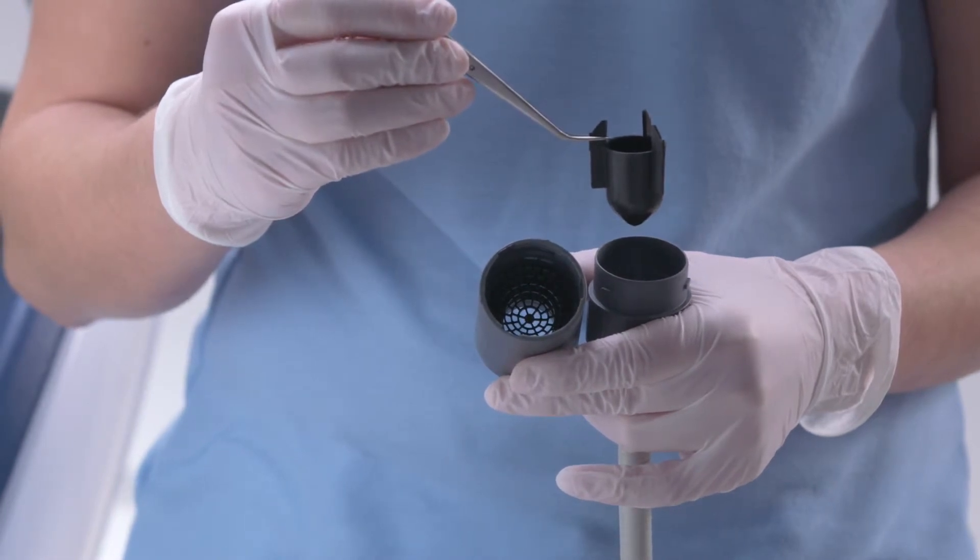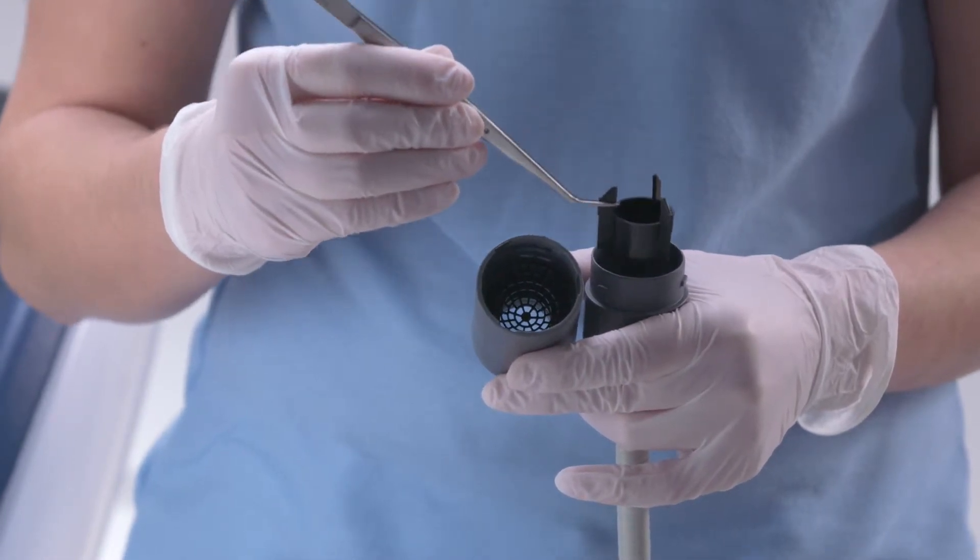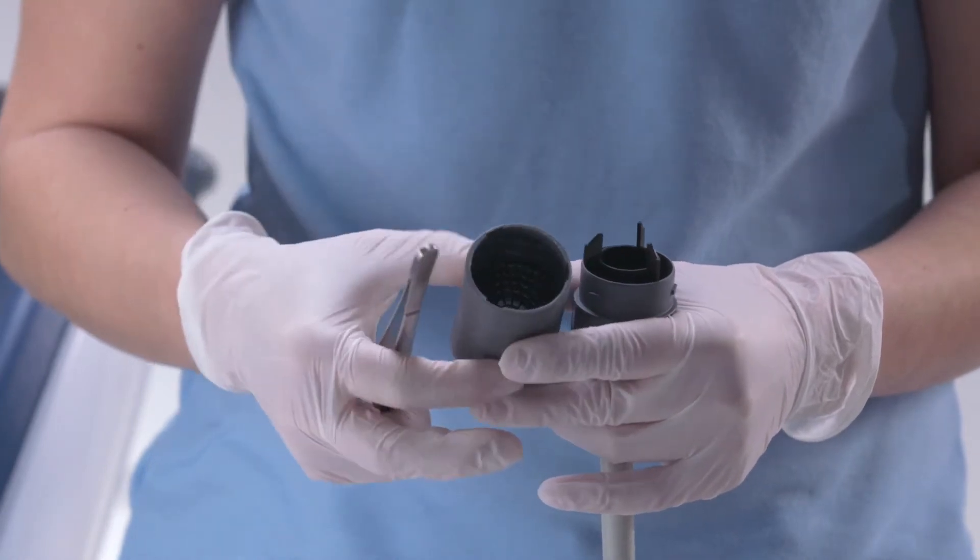Clean the filter inserts in the suction hoses. These serve to retain solid particles such as amalgam.